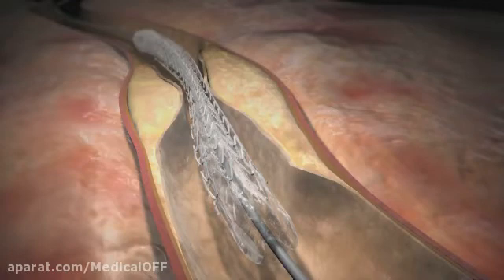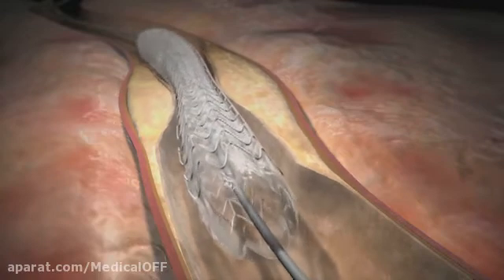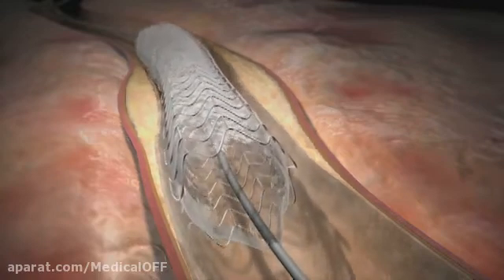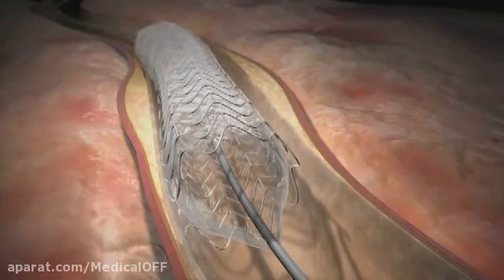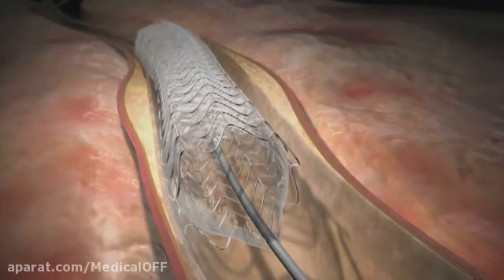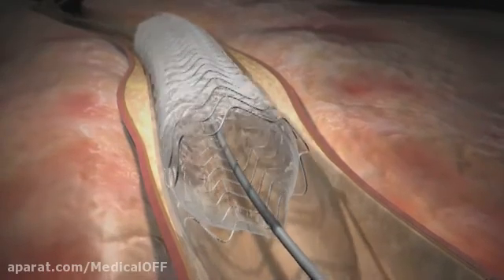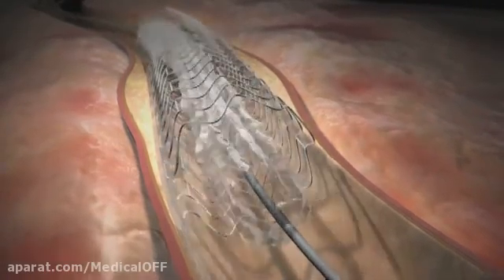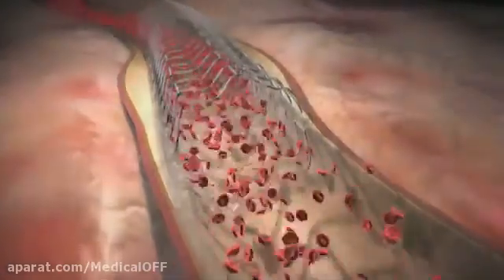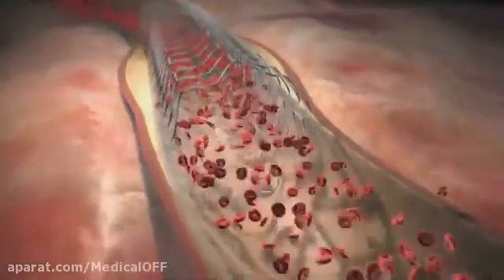By inflating the balloon, your doctor will gently push against the plaque, compressing it against the vessel wall. The inflated balloon will then expand and lock the stent in place, keeping the artery open and improving blood flow after the catheter is removed.